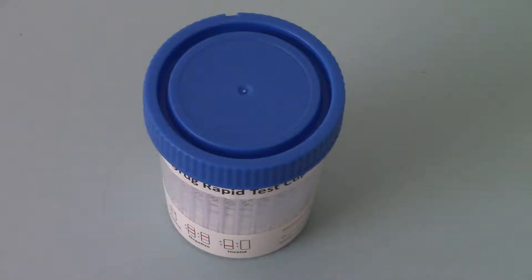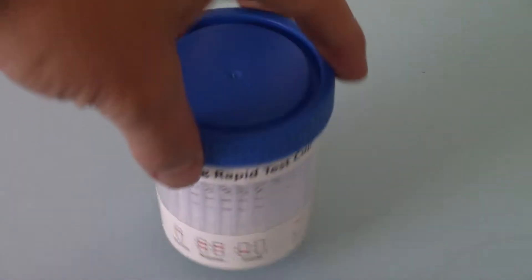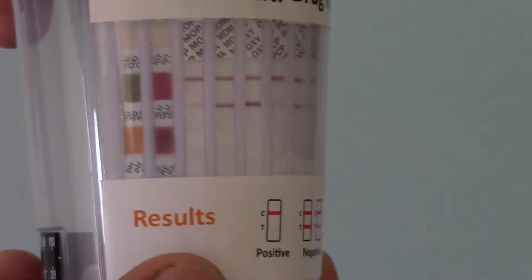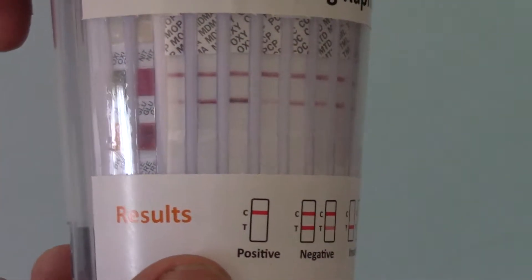Okay, welcome back to this final part of this 16 drug test cup demonstration. We've now waited for the full 10 minutes for the development of the test results on this cup test and we're just now going to run you through the interpretation of these lines.